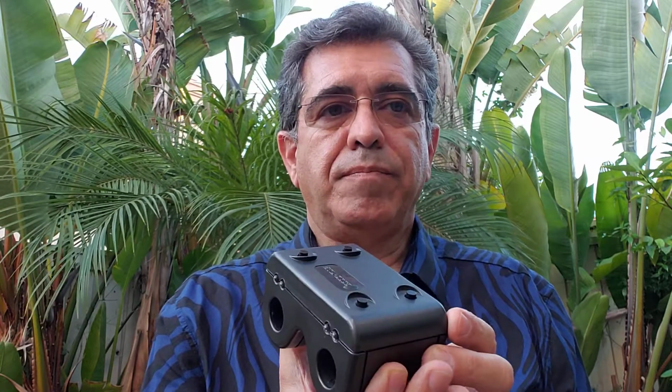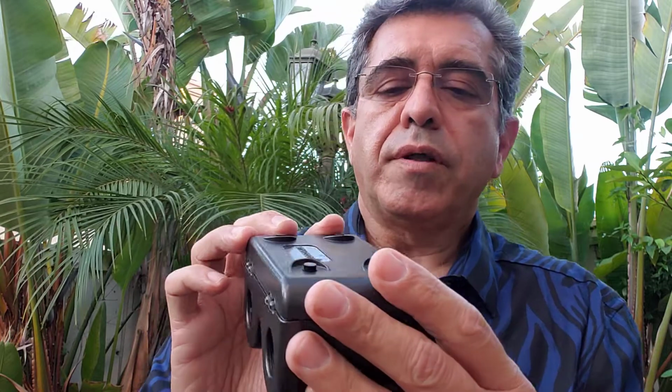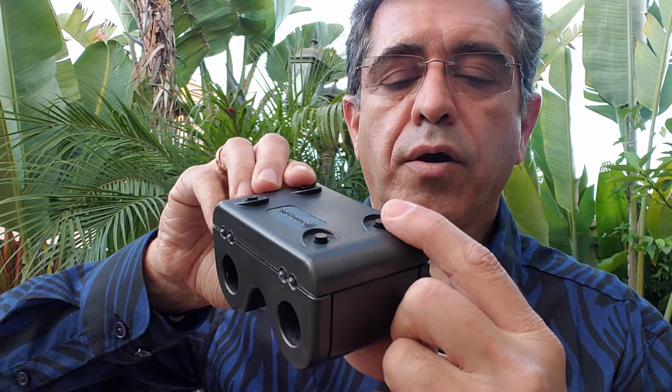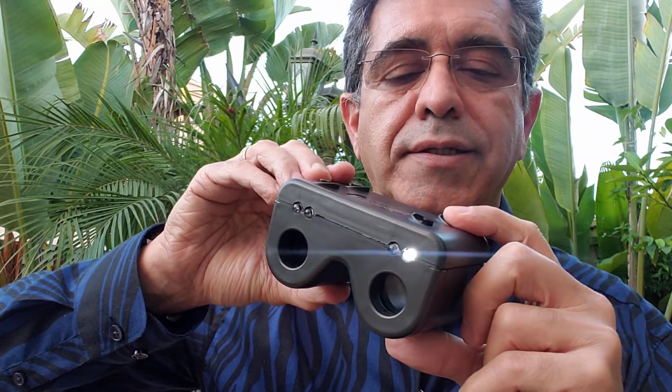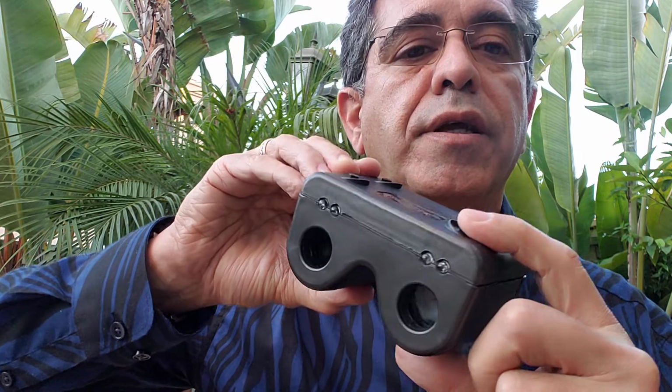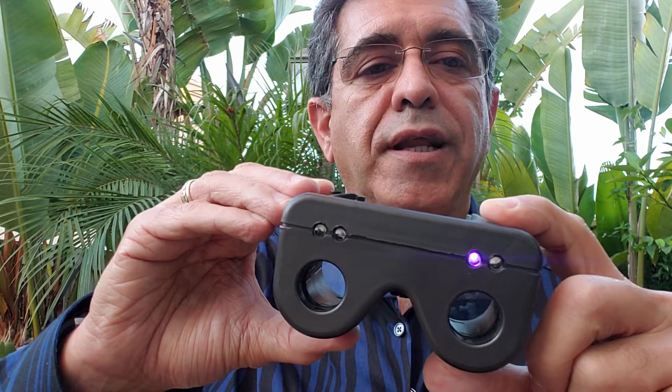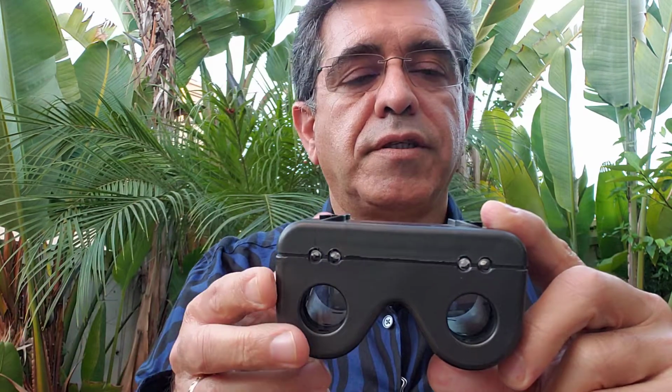There are 2 other lights incorporated in the APD tester. These are controlled by the buttons in the front. So the back buttons close to the oculars are the white lights, and the front button actually controls the other light, which happens to be a blue UV LED light. And there is one on both sides. They are designed for examining the cornea or conjunctiva after instilling some fluorescein dye.